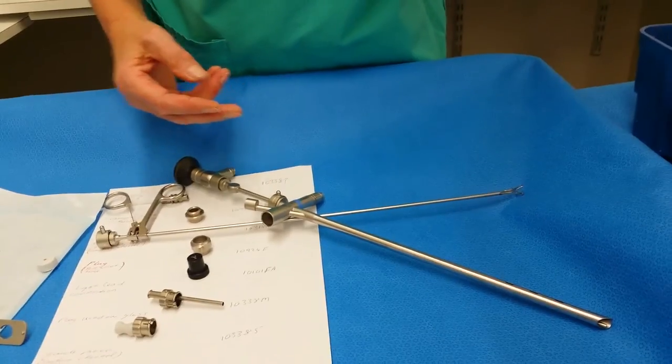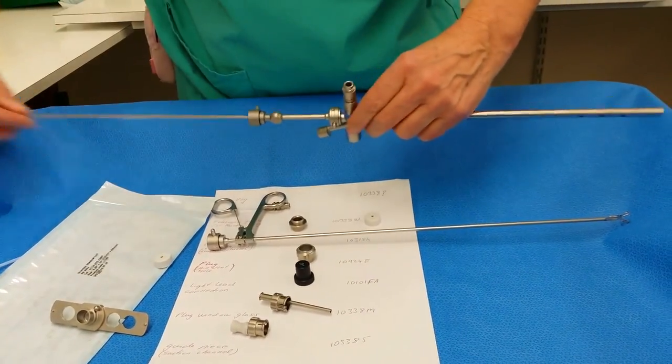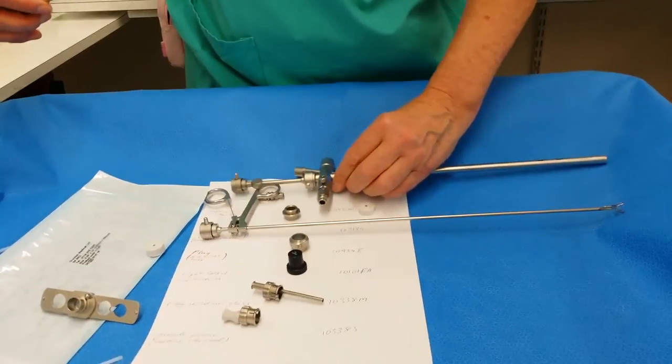And that's basically how to use the pediatric bronchoscope. Thank you.